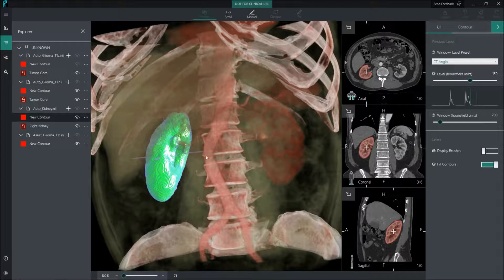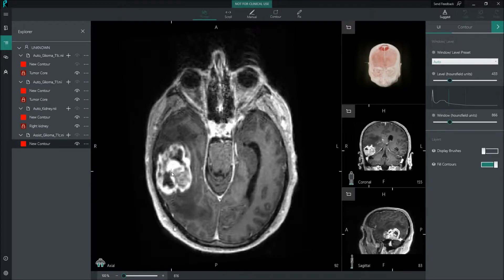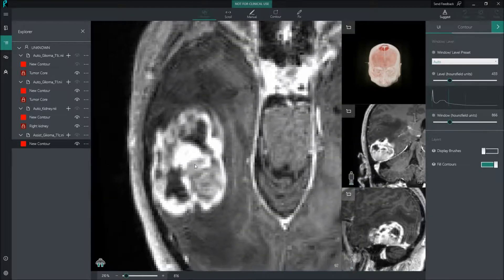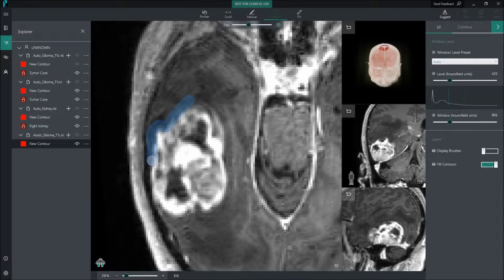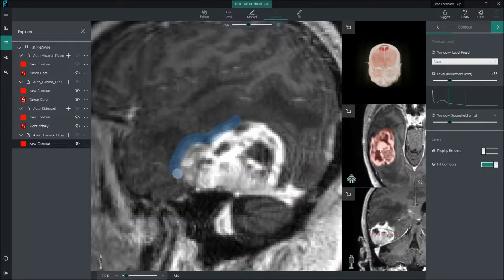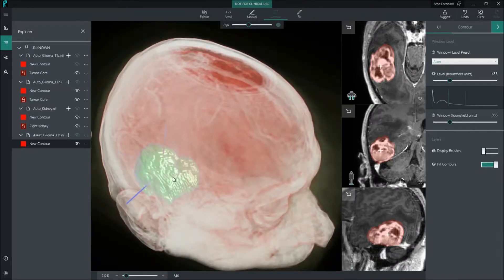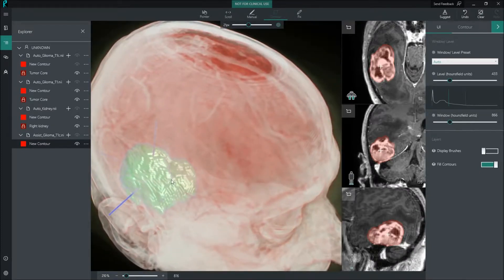Now, at Microsoft we believe in assisted AI. That means that AI algorithms can work alongside human experts such as Raj, rather than completely independently. We are designing AI algorithms that can augment our skills rather than replace the experts. Here is an example: I am providing in two horizontal slices some hints of where the tumour should be, and as soon as I release the mouse, the full 3D segmentation is obtained accurately for us, while the expert maintains full control over the process at all times.